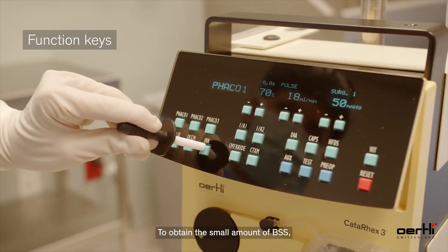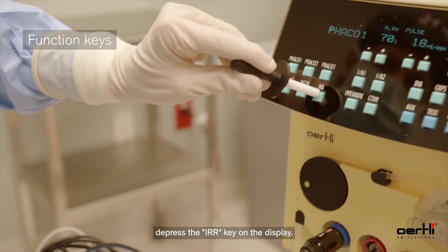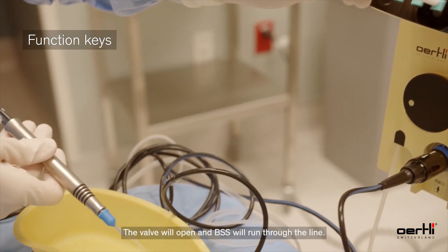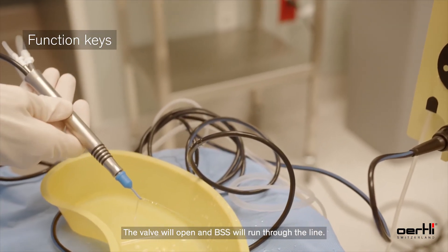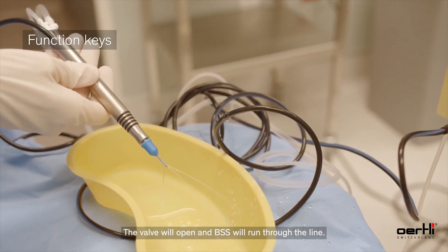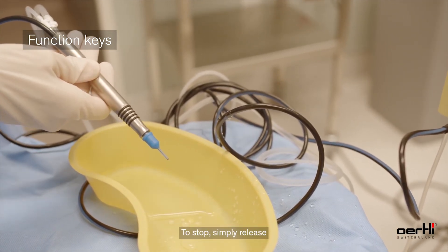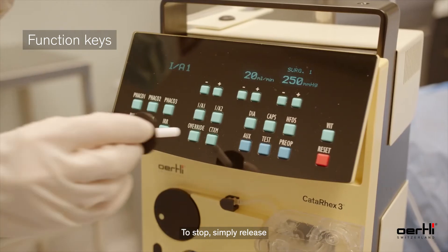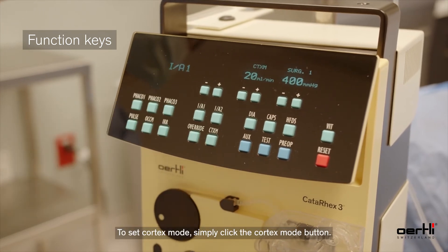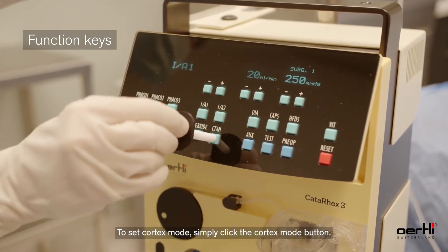To obtain a small amount of BSS, depress the IRR key on the display. The valve will open and BSS will run through the line. To stop, simply release. To set Cortex mode, simply click the Cortex mode button.